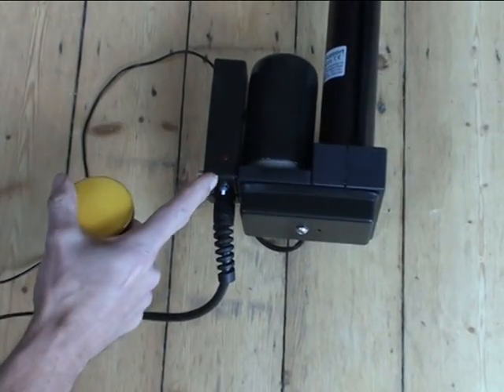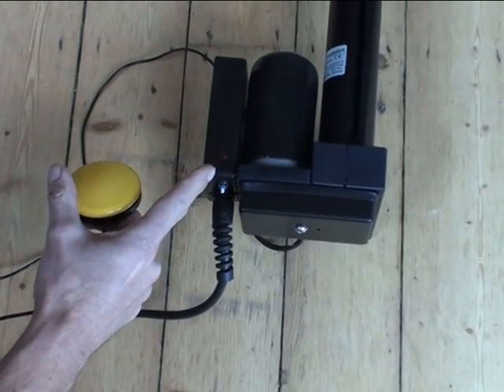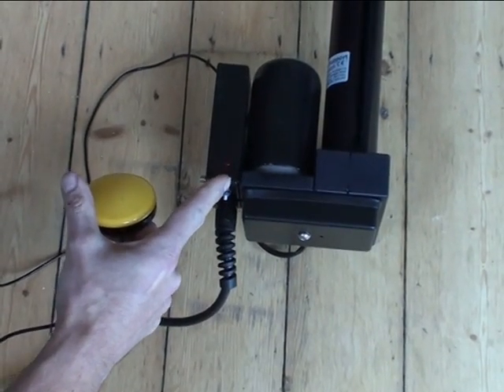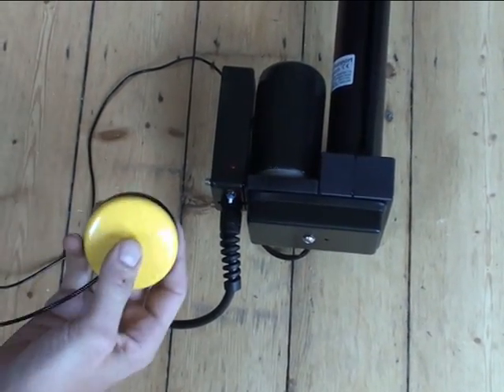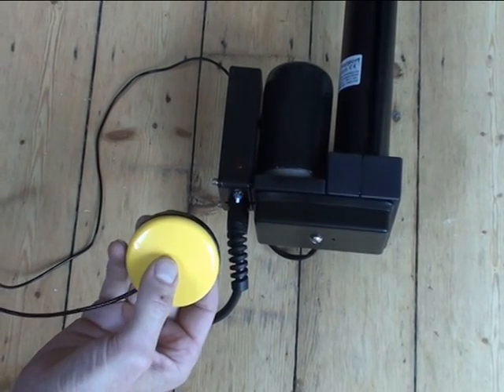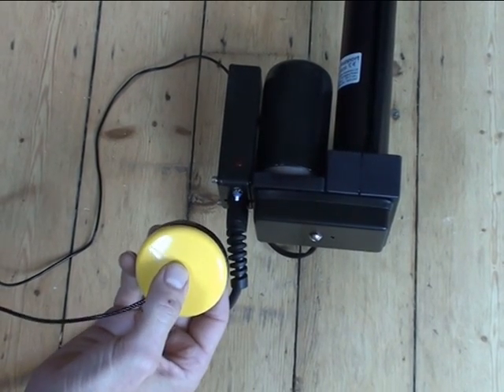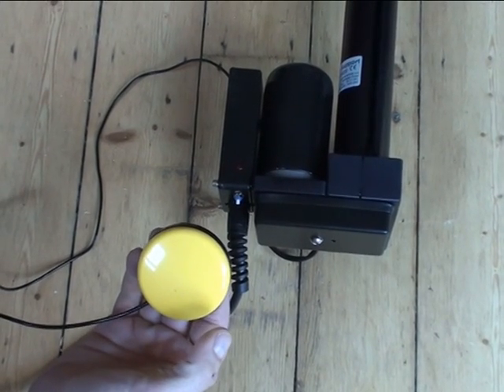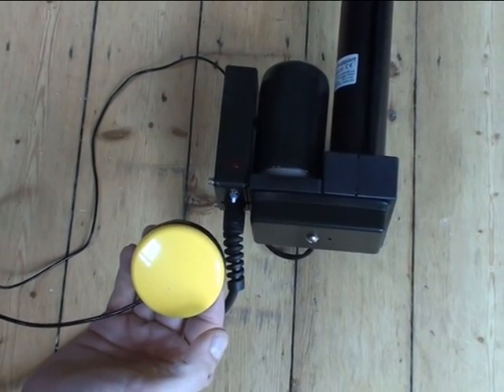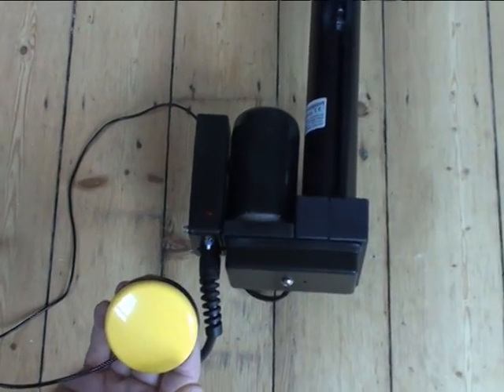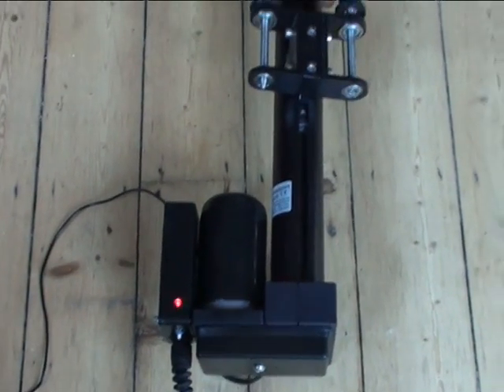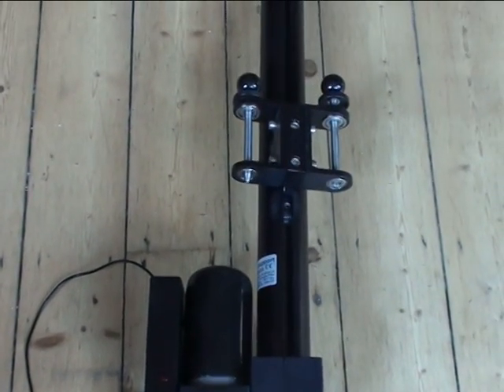You can see the light is doing its treble flashing which means you have ten seconds to press the button three times. The unit will now recalibrate.